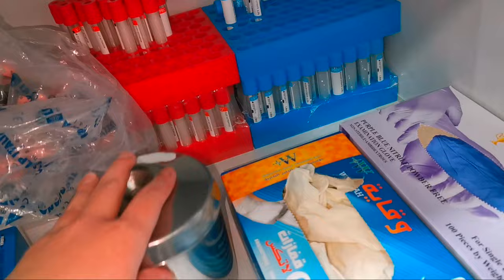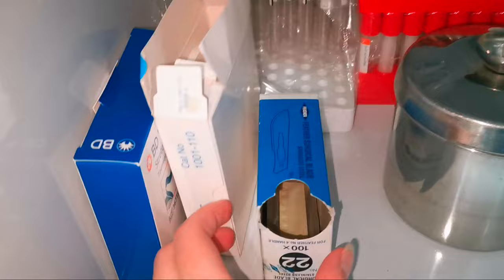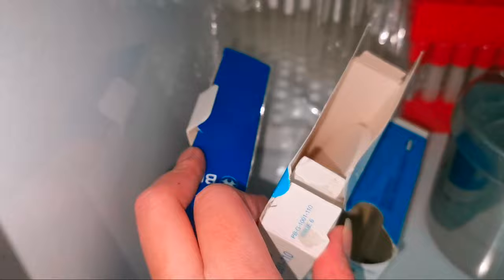Evacuated tubes with different additives. Gloves, sterile lancet, filter paper and tourniquet.